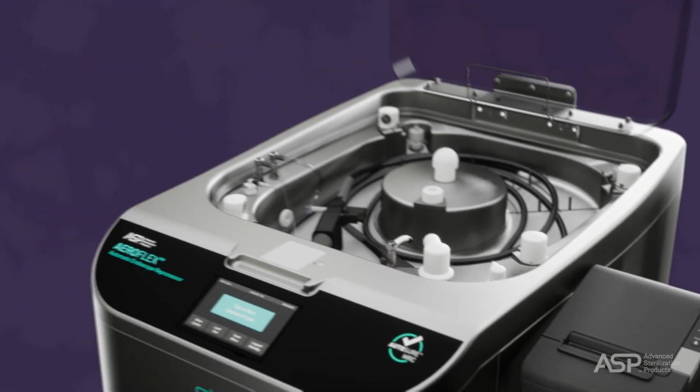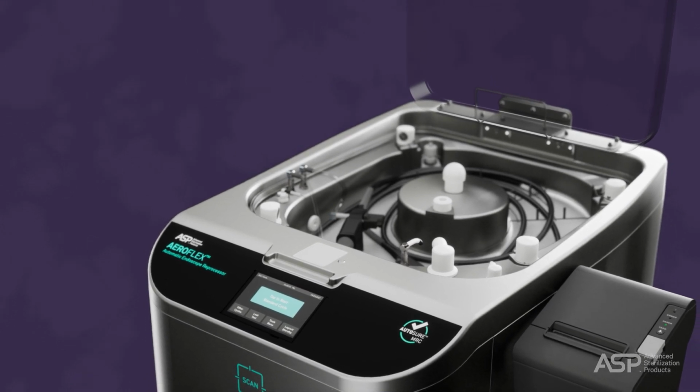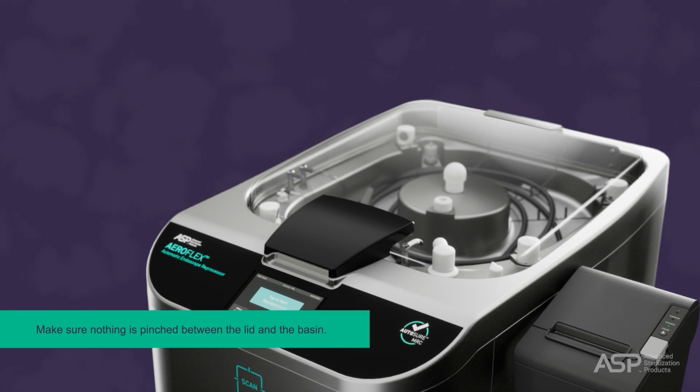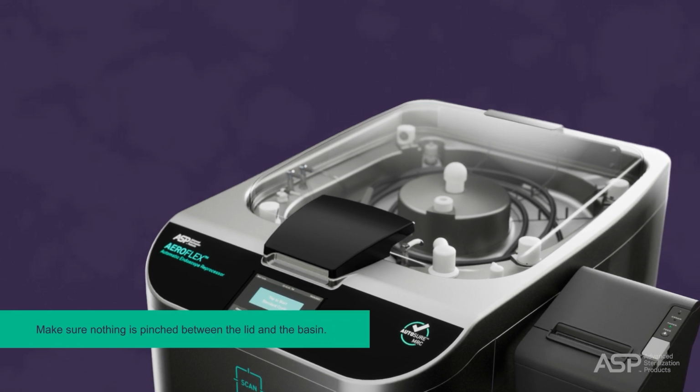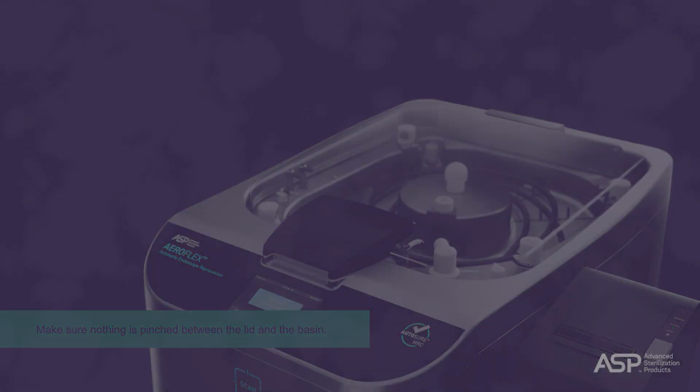Once completed, remove and discard your soiled gloves and put on a new clean pair before touching the screen. Then close the lid, making sure nothing is pinched between the lid and the basin, and confirming the endoscope is below the lip of the overflow drain.